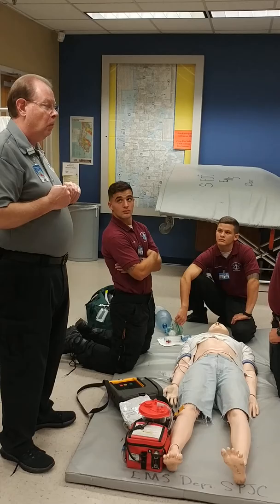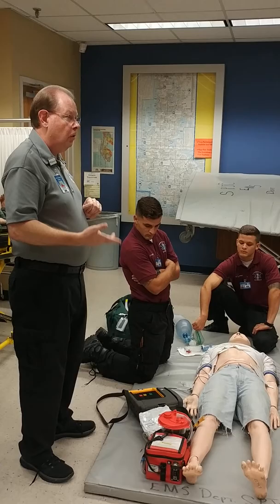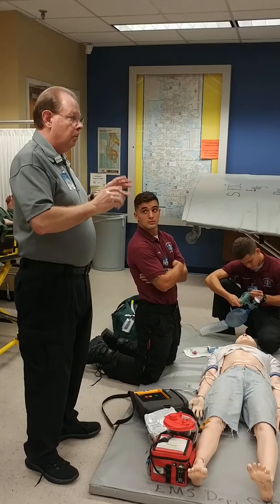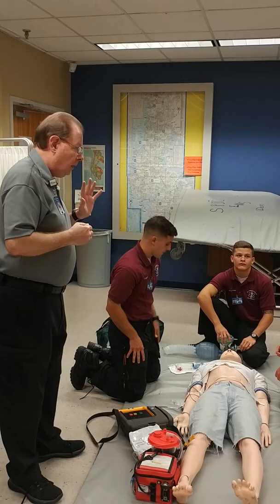The AED will tell me to analyze again in two minutes. What if that patient is in V-tach but with a pulse? If you get a pulse back, disconnect the machine and turn it off — you don't need it. But do not take the pads off the chest, because you won't get them back on as well. Leave the pads on, just disconnect the machine.